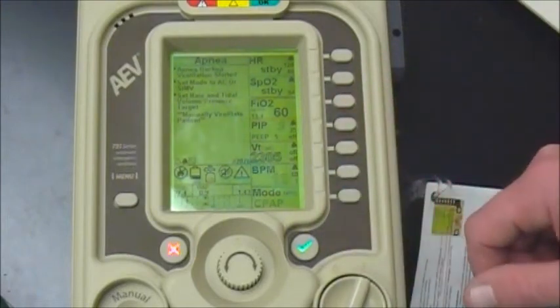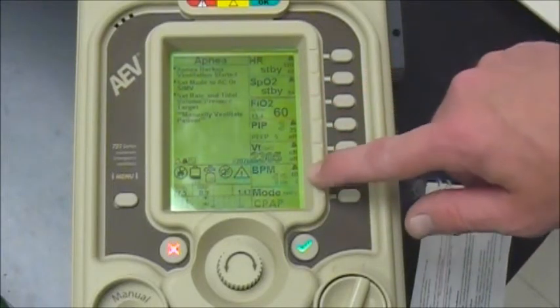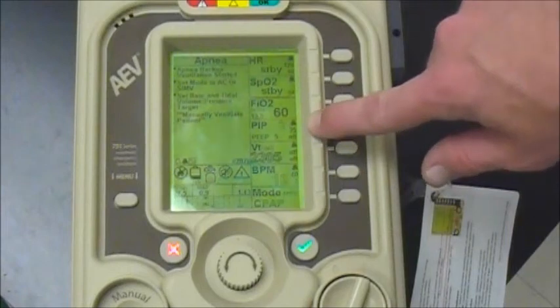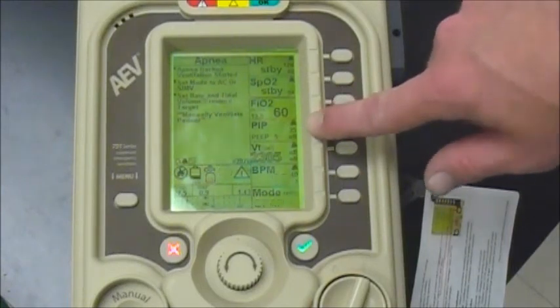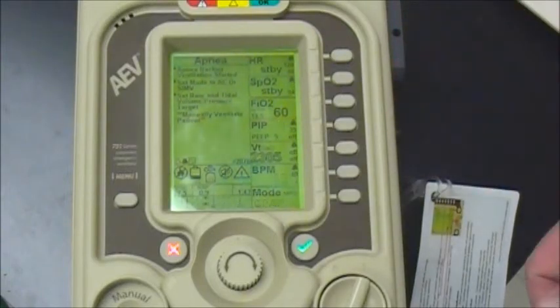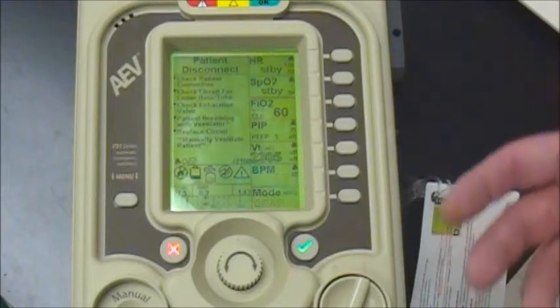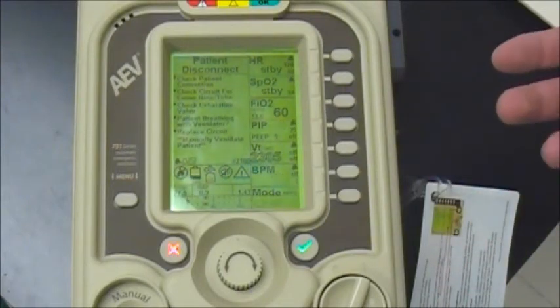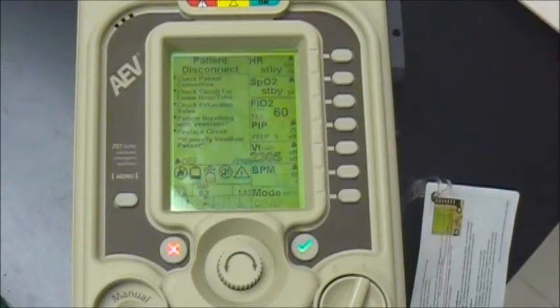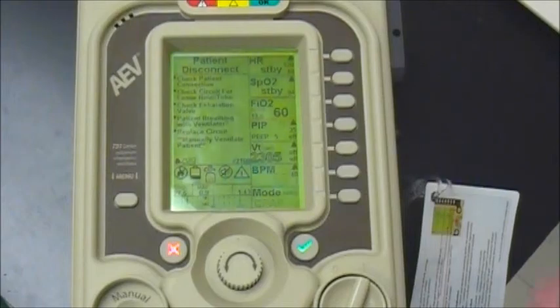Other than that, there shouldn't be a lot of other settings to worry about. You can adjust your FiO2, and you'll see the resulting breaths per minute your patient is taking. You've got your PEEP setting, which you can adjust down to 3 or 4, or maybe up to about 6 or 7. I caution anyone against going to a PEEP higher than 10, because when you're using pressure support, you're adding that pressure on top of your PEEP. That's basically all you need to know to set up BiPAP mode.